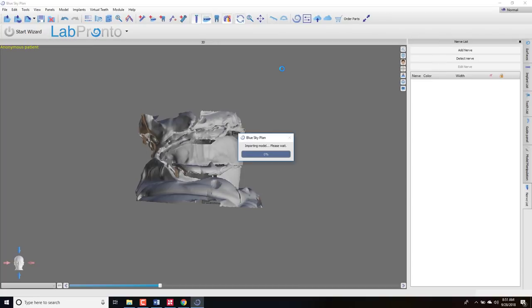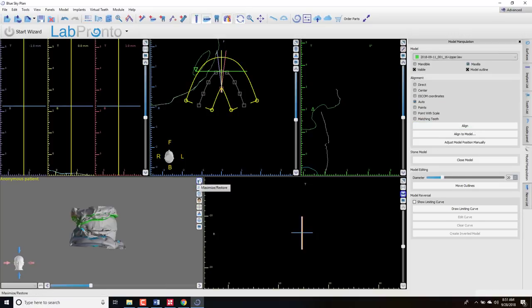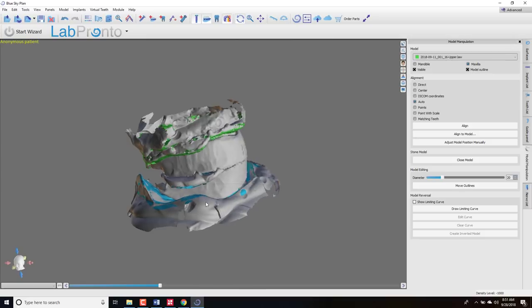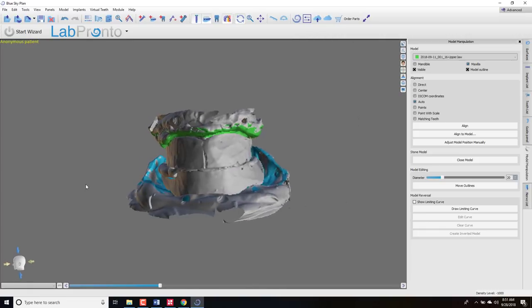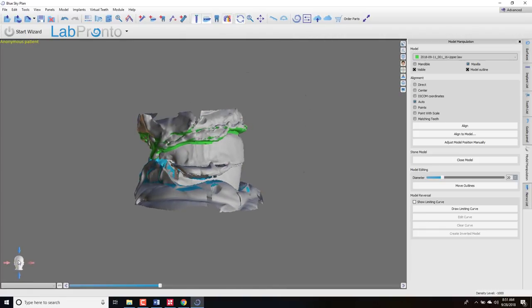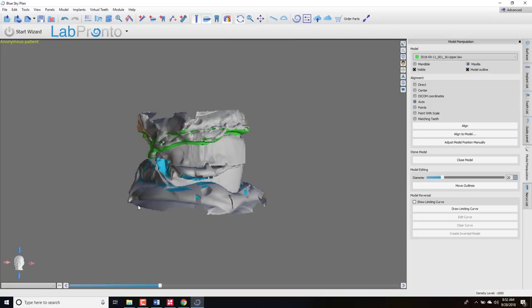All model importing should be done in this 3D window within the surgical guide mode — whether normal or advanced — you have to be in surgical guide mode to first pull in models and secondly to orient them. Here are the models. One notable thing right now is that they're not oriented the same way as the head. Currently this is one of the things we're going to improve on, where you'll just have to click three dots on the incisive papilla and the two hamular notches and everything will auto-position. Until then you'll have to manually align these to the head.